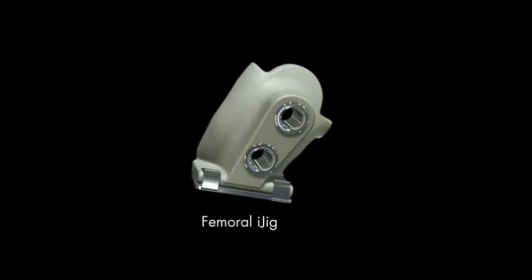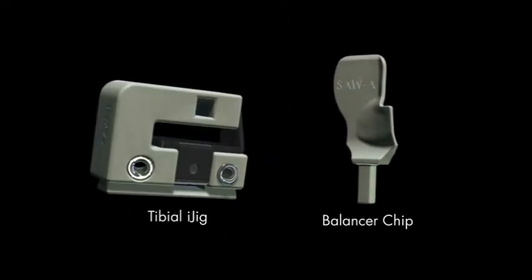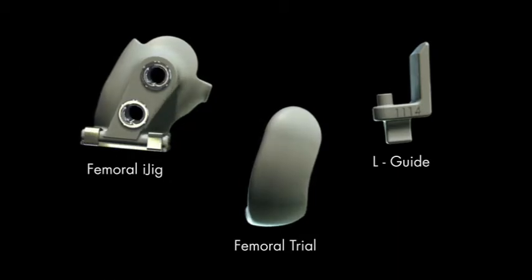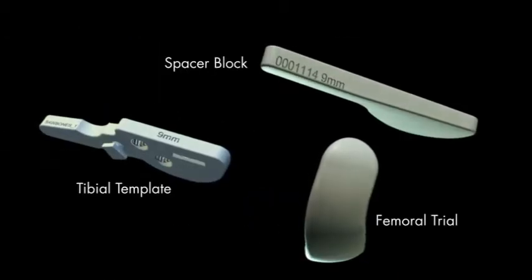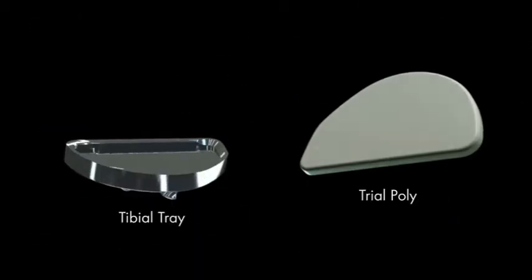First, cartilage removal. Second, balancing the knee. Third, axial and sagittal tibial cuts. Fourth, femoral preparation. Fifth, tibial preparation. Sixth, cementing implants.